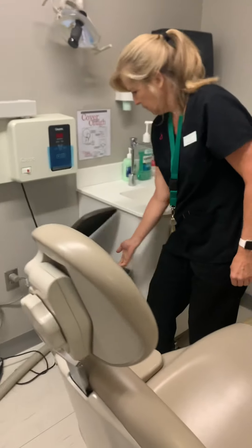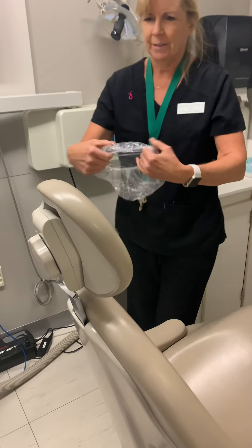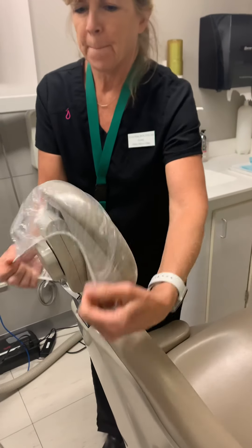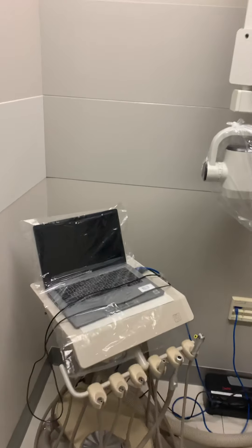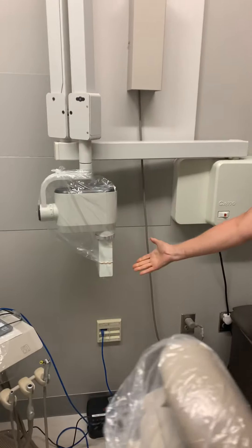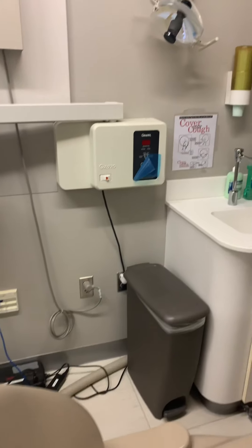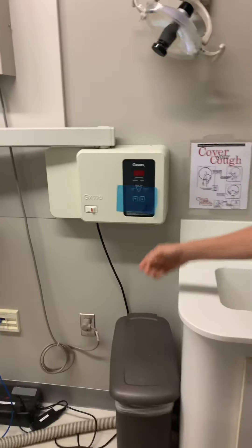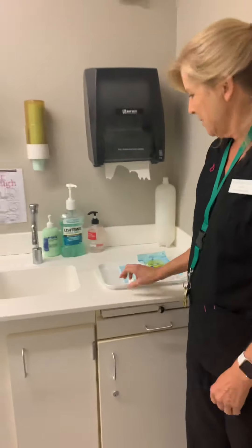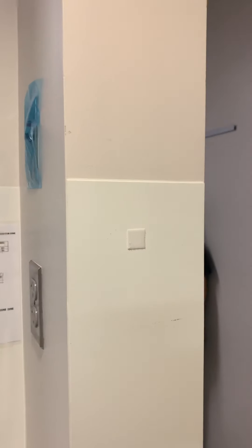And then we're going to put the little shower cap over top of the head. And we are good to go. So you have the laptop cover, sensor cover, PID cover, headrest cover, and don't forget the two blues. Our tray is here and we have our barrier here.